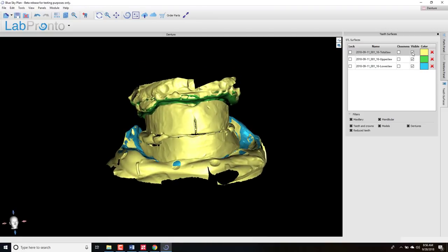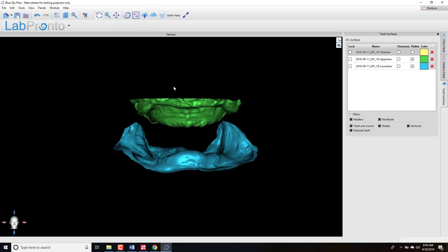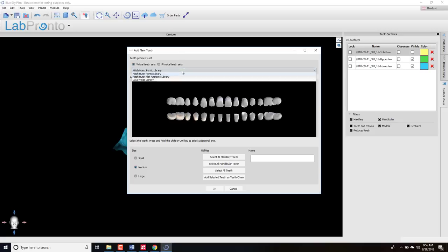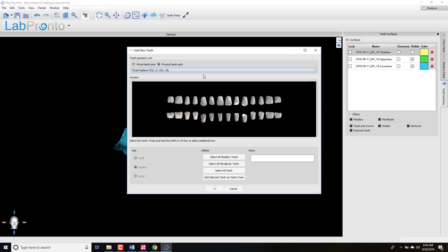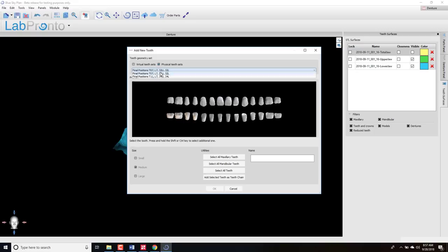Turn off the total jaw model and add the teeth sets. Go to Add Tooth and you'll see multiple libraries — two options: virtual teeth sets and physical teeth sets. For physical teeth sets you currently see three options — these are Nobilium teeth and the names correspond to the mold: T5, L7, 32U, and 32L — upper anteriors, lower anteriors, and posterior teeth upper and lower. These roughly correspond to T5 for small, T7 for medium, T11 for large patient mold sizes.